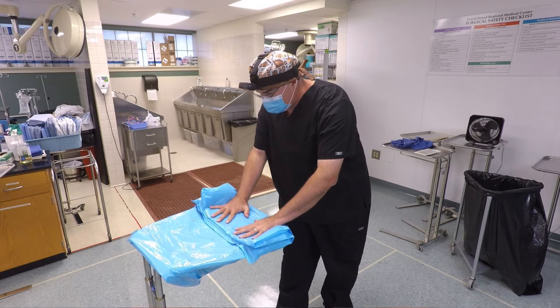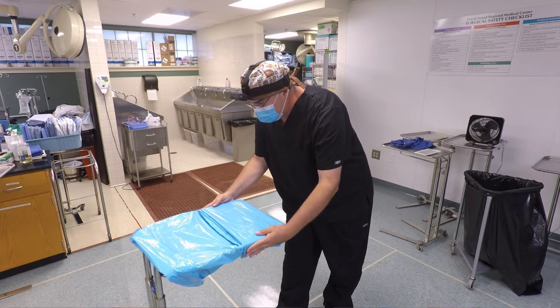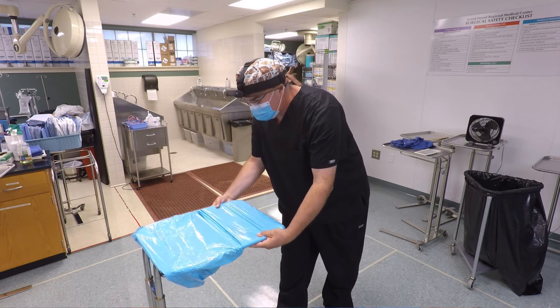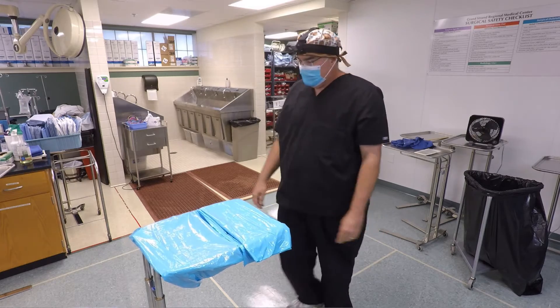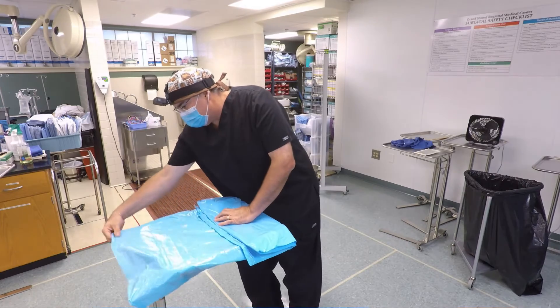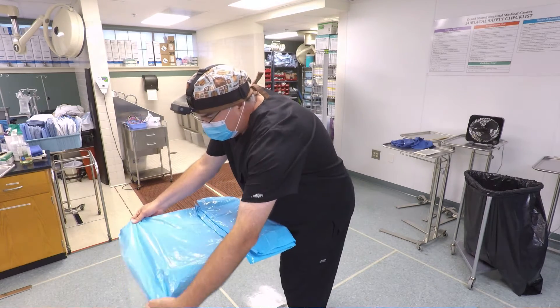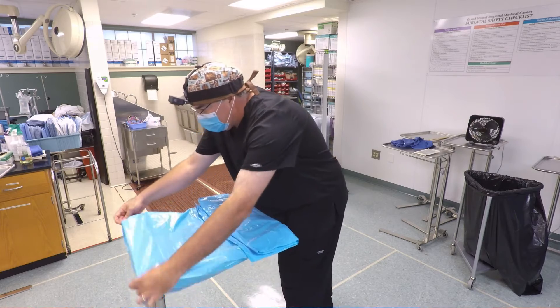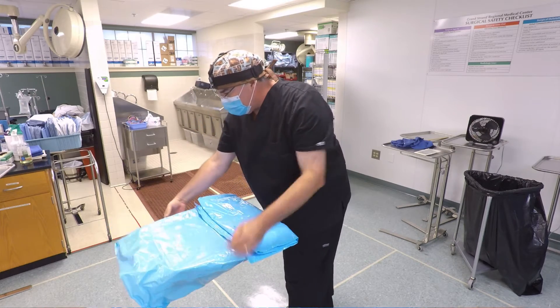At this point it starts to gather some air, so I like to squeeze the air out of it as much as I can. Now the last segment is about halfway down the piece that is left — and this is the piece that is left, about halfway down.